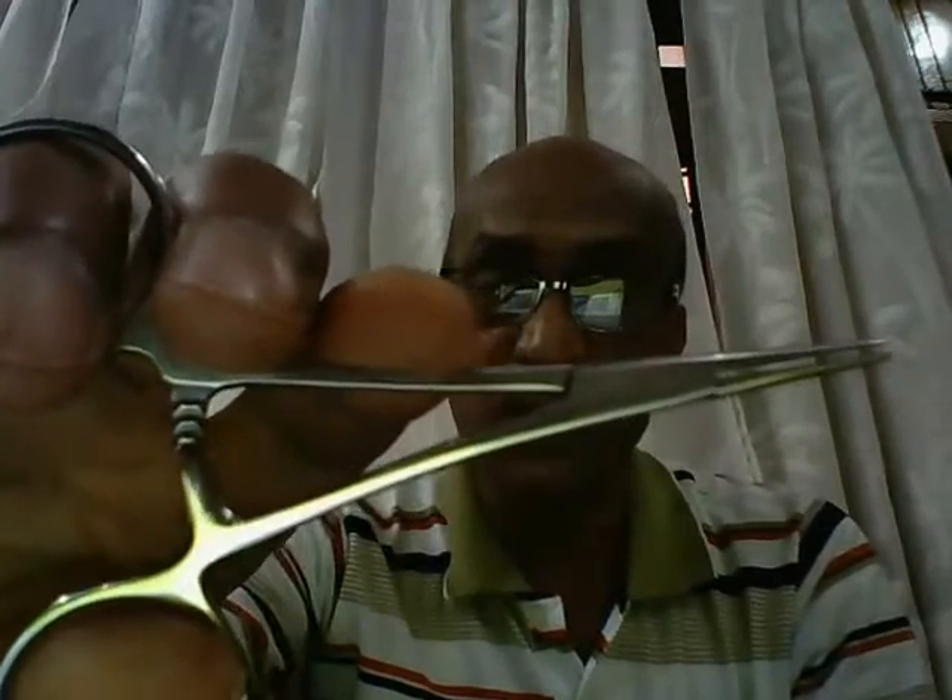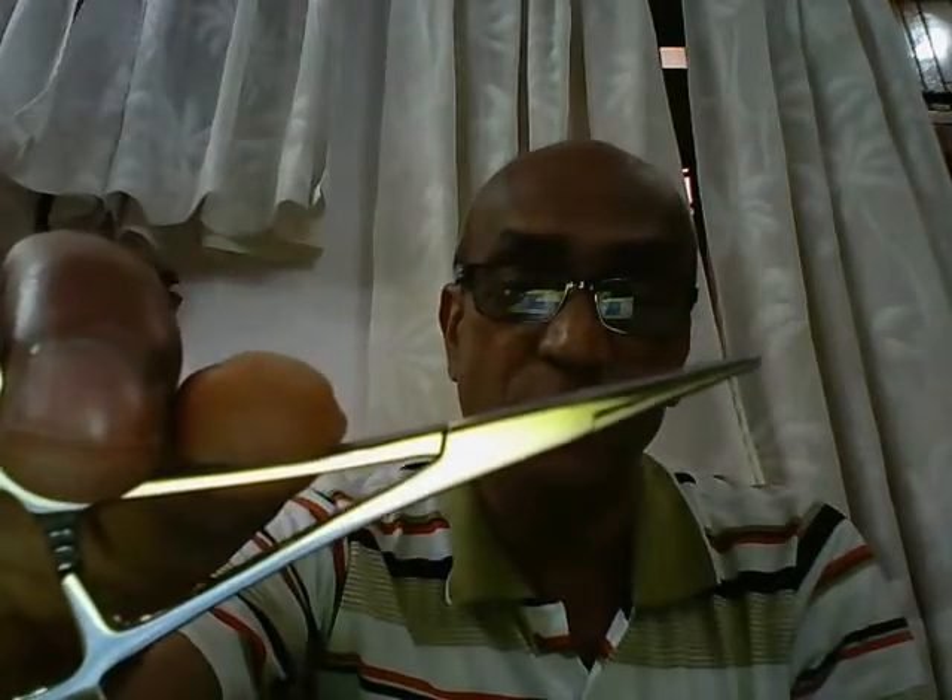So what's the purpose of an artery forcep? The straight artery forcep is used to hold tissues and to hold stay sutures. These serrations are meant to get a firm grip. We can also have a curved artery forcep. The curved artery forcep is used to hold small bleeding vessels, and therefore it is also referred to as a hemostat forceps.